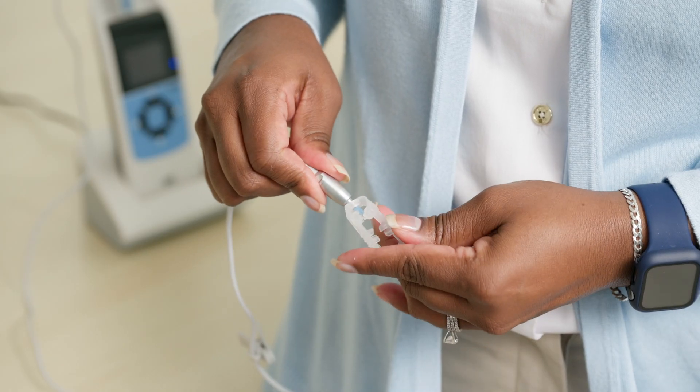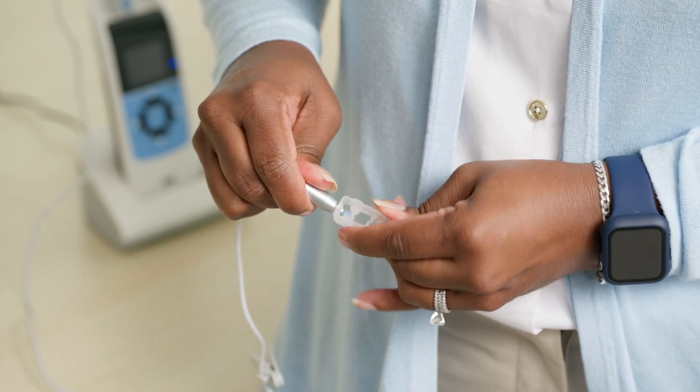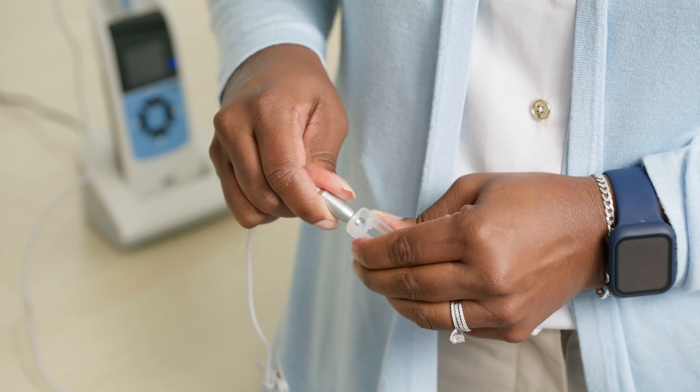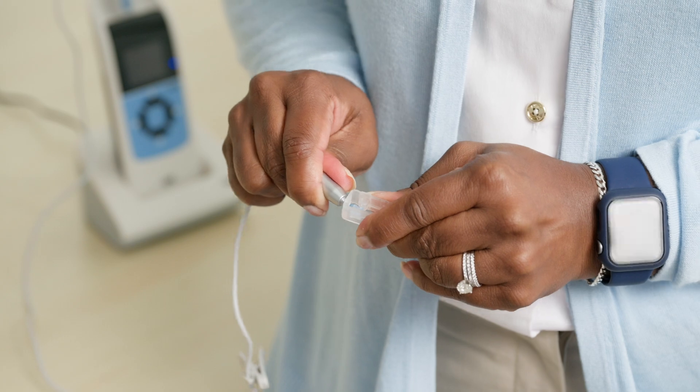To use the tool, slip it over the blue tube until it meets the probe body and pinch the ends together to grasp the tube. Pull to remove and discard the probe tube.